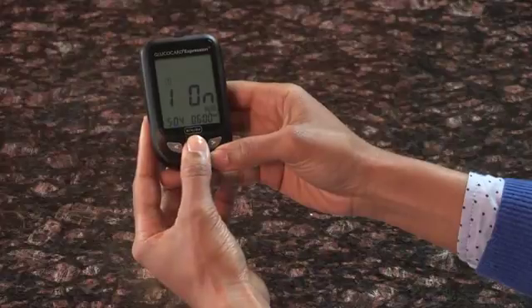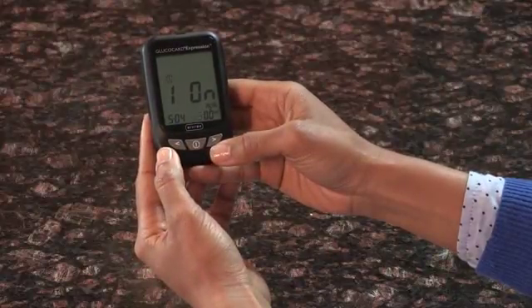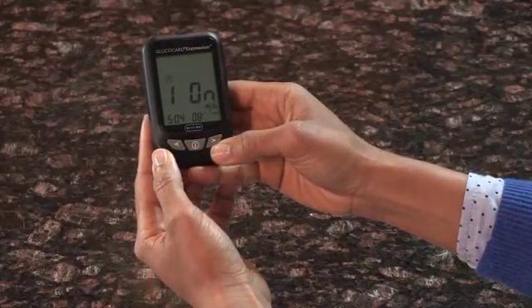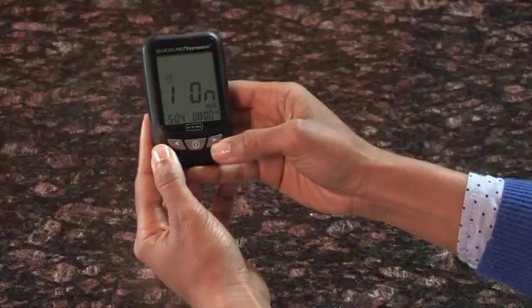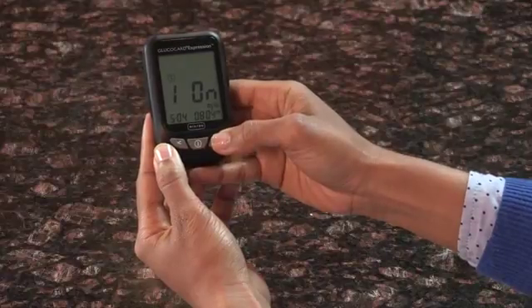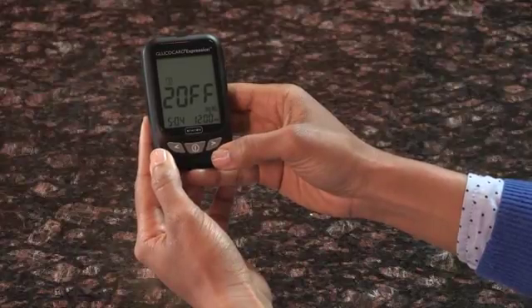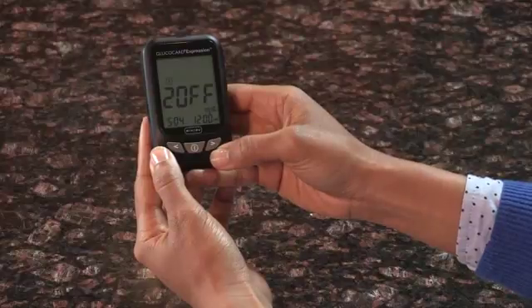Press Enter and the hour will flash. Press either the left or right arrow to select the hour. Press Enter to confirm your selection and the screen will advance to the minute setting. Press either the left or right arrow to select the correct minute. Press Enter to confirm your selection and the screen will advance to Alarm 2 and 3.